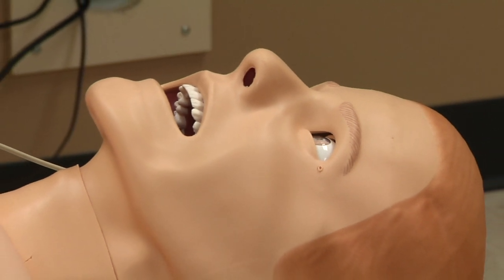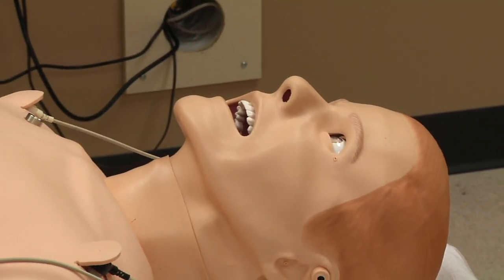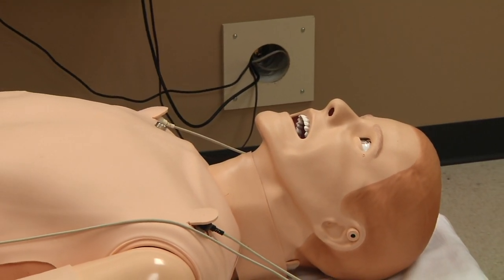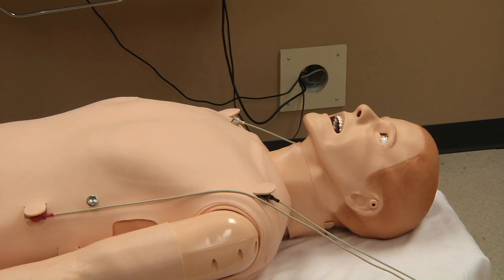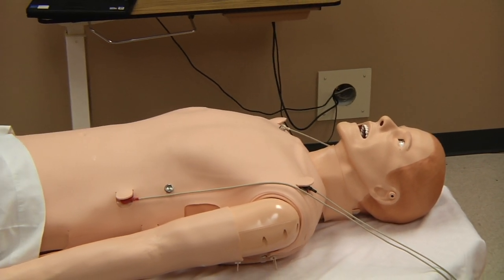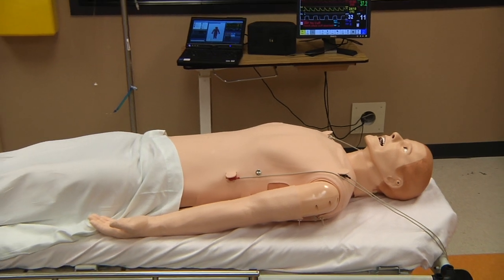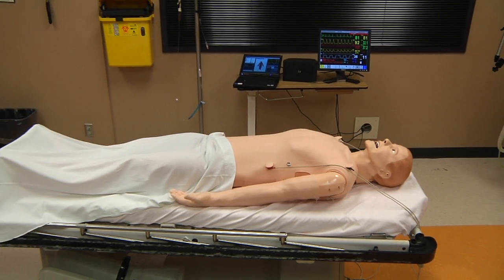This concludes the video orientation for SimMan 3G patient simulator. Please note that every effort should be made to accompany this video with a hands-on training session with an experienced simulation instructor. We hope that you have both an enlightening and engaging experience.